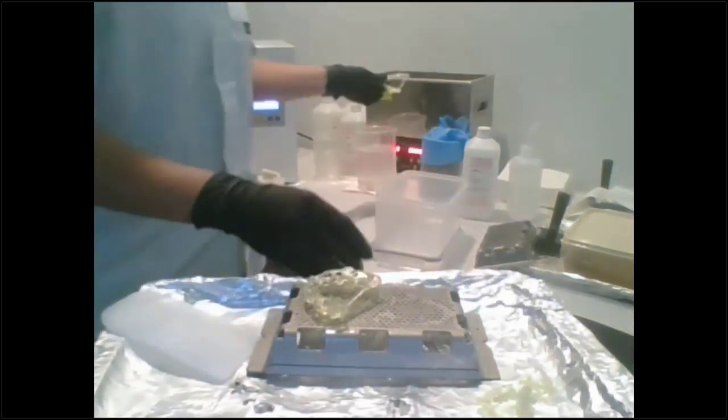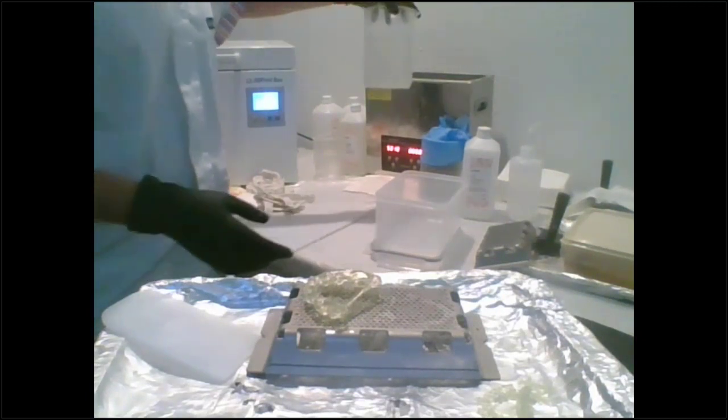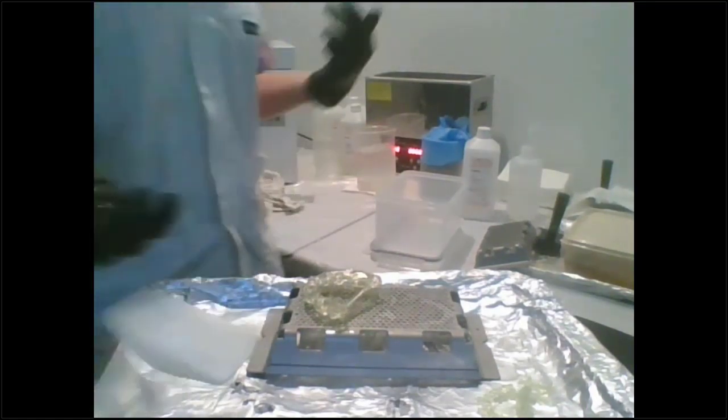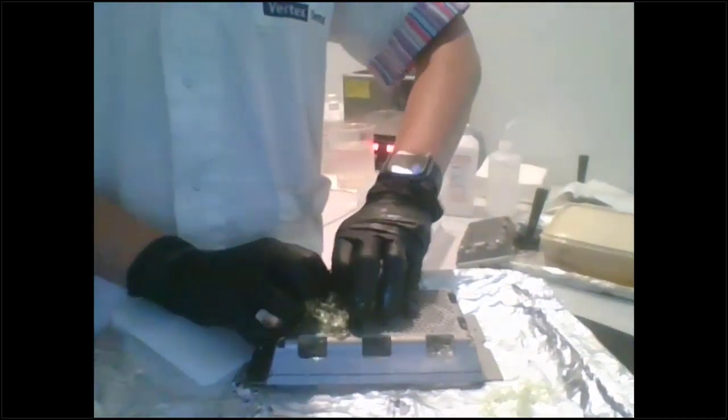Okay, and then you'll put it in your alcohol bath, and you can use your old alcohol first. Now, if I'm doing like a bleach shade or something, I don't use any old alcohol. I always use new alcohol for both. I don't want to get any color in there from any of the other resins. And so same with this one.